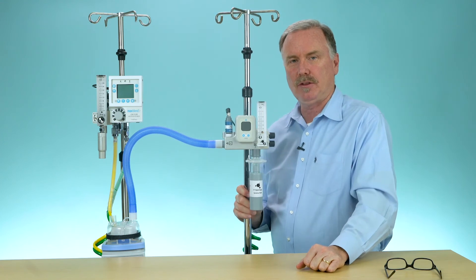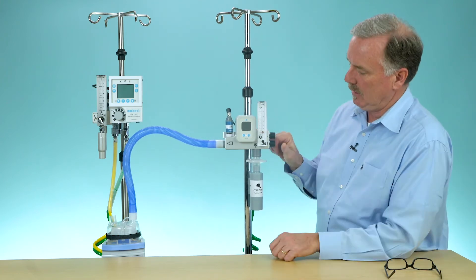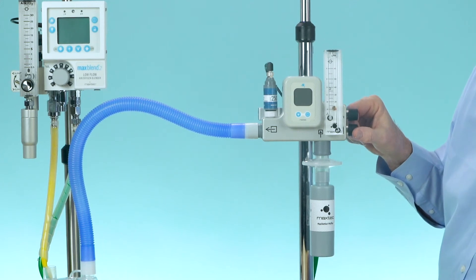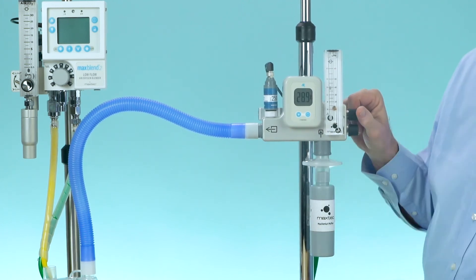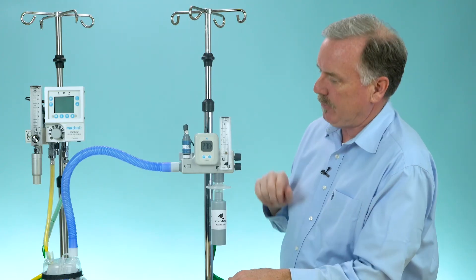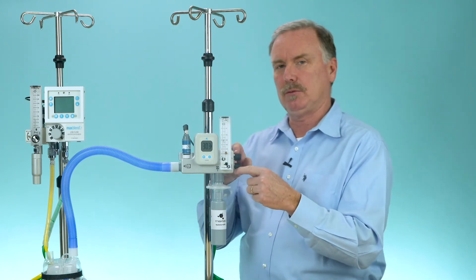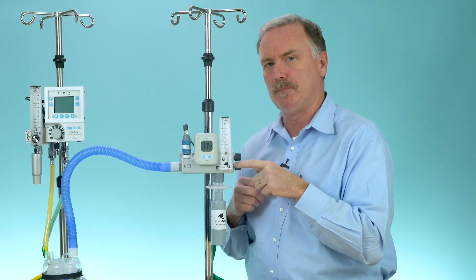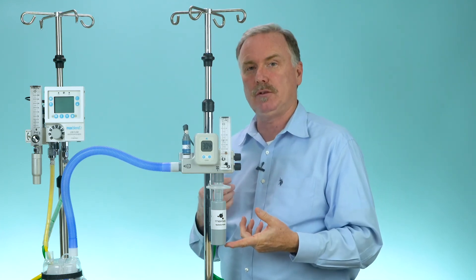Our IFUs talk about the initial setup: make sure the main power switch is on, which turns on flow to the entire unit, and then adjust the flow control knob to your prescribed flow. You can hear the Venturi. Then you would start to dial in the prescribed FiO2 — that's a good time to turn on your oxygen analyzer. One thing to check is that the two knobs are somewhat related, so a change in FiO2 may require you to change the flow knob, because as you change the O2 percentage you could be changing the Venturi or total flow amount.